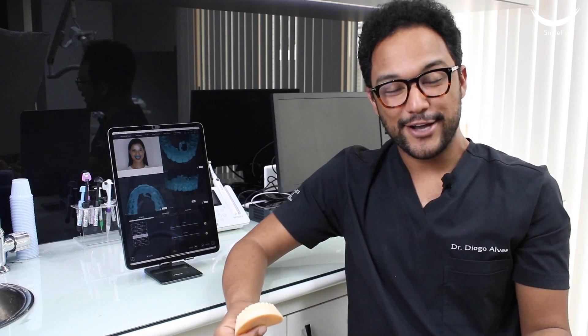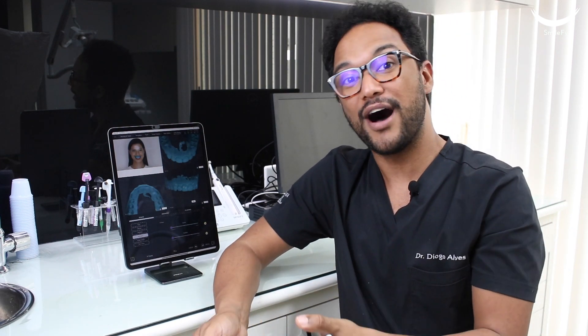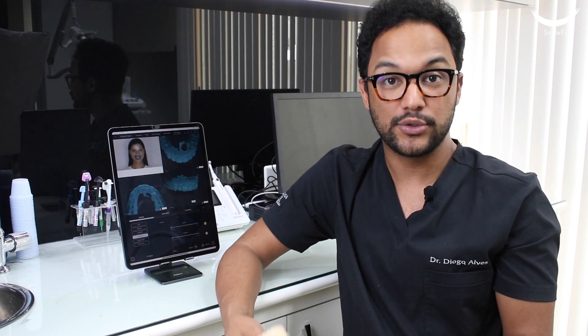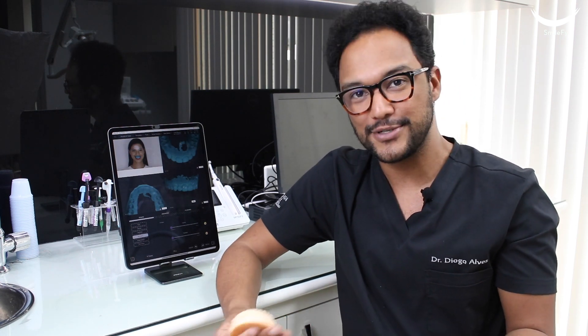As you can see, Smile Trials with Smilefy can be done very quickly and in-office, which gives you the chance to have better ownership of the treatment plan that you are proposing to your patient.